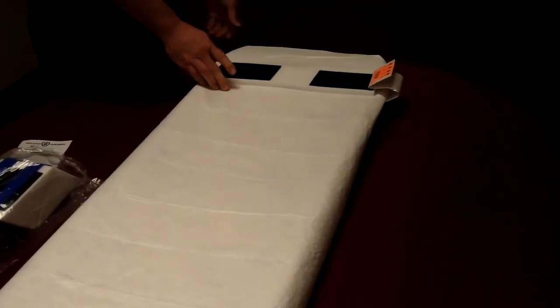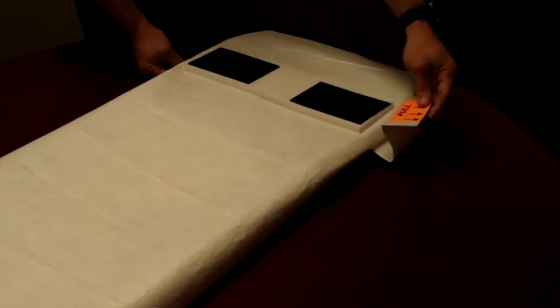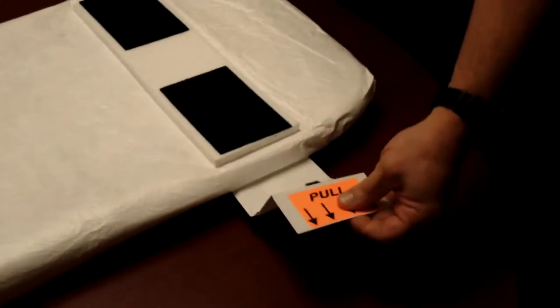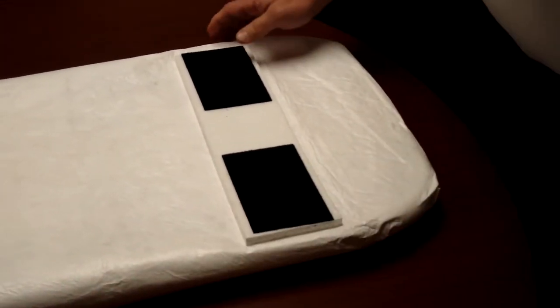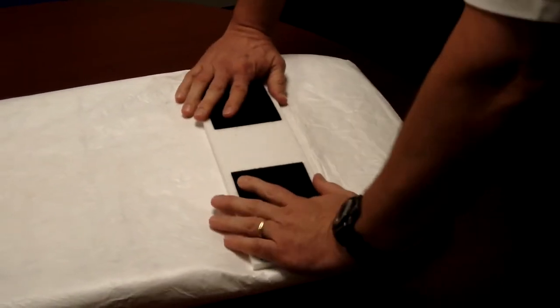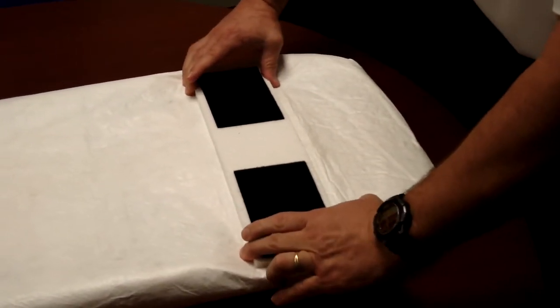You are now presented with your head immobilizer at the top with an adhesive pull tab that says pull here. You simply hold that, which exposes the adhesive on the underside, push down on your head base, and that's going to secure your head immobilizer to your backboard.